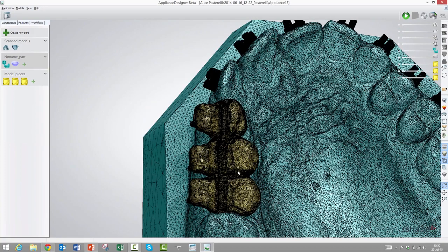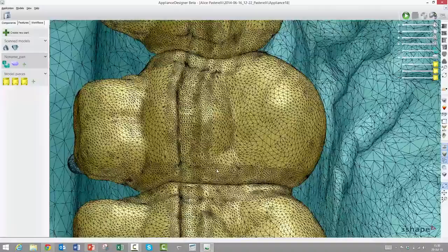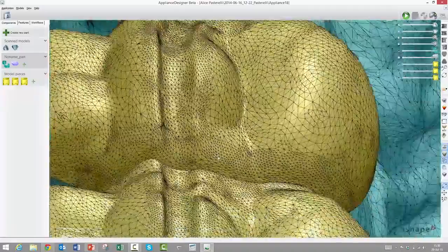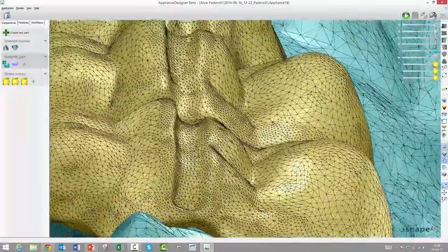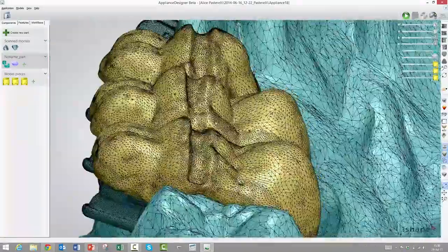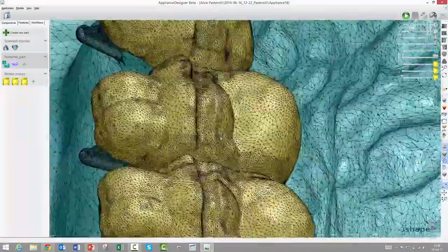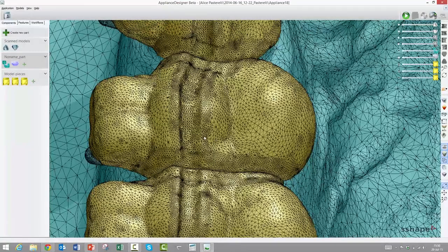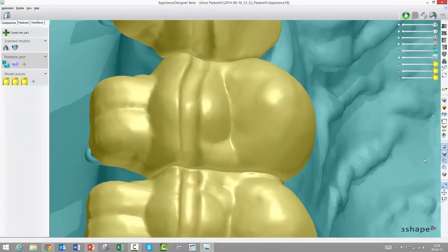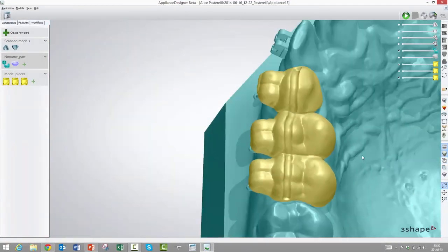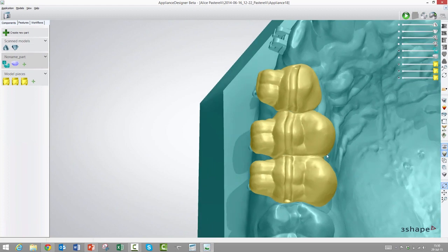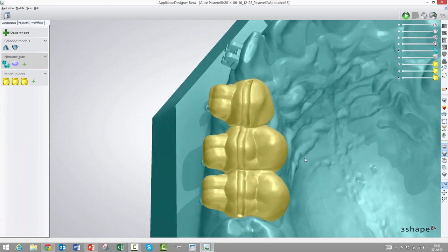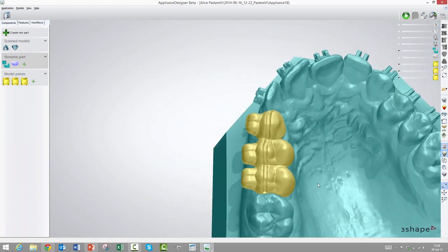It's already done now, so we'll press done, and then we will turn off the original design element. Now we can turn these off individually and they are ready for seating. If we turn on the grid here, you can see that this is ready for a printer out of the box. It's a good, nice mesh as usual, so you should be able to produce this right away.